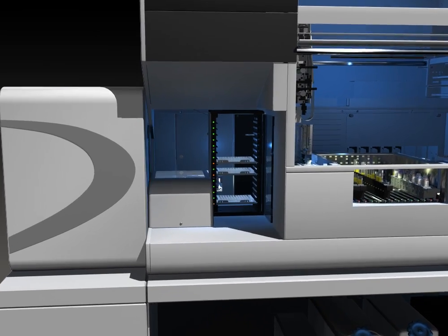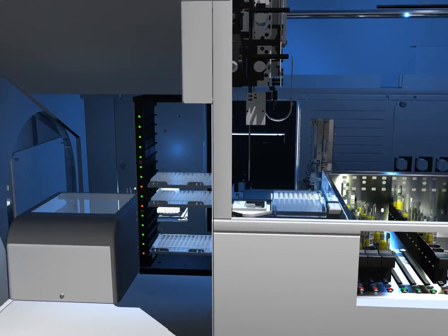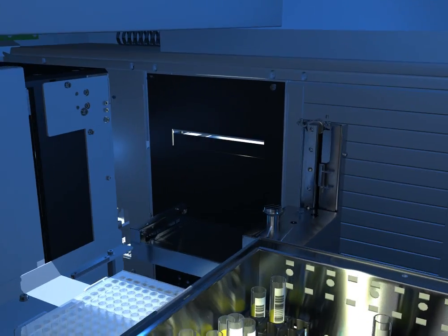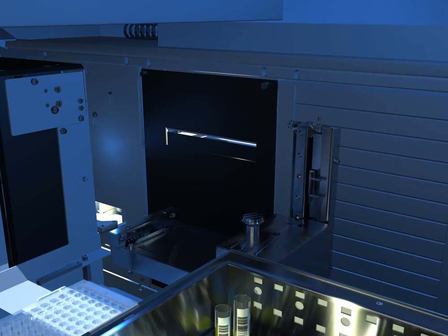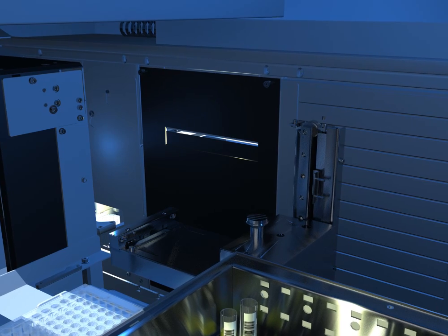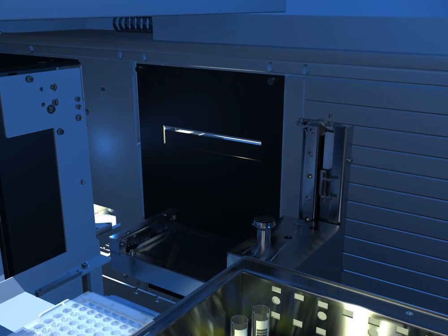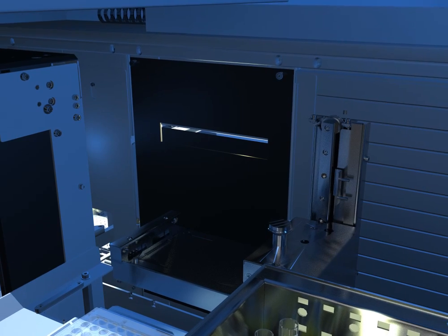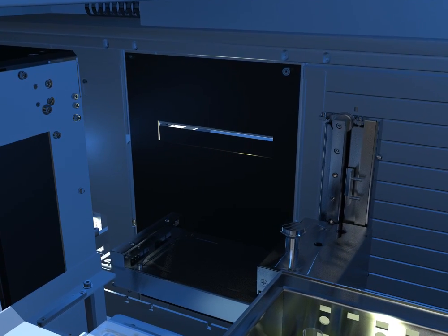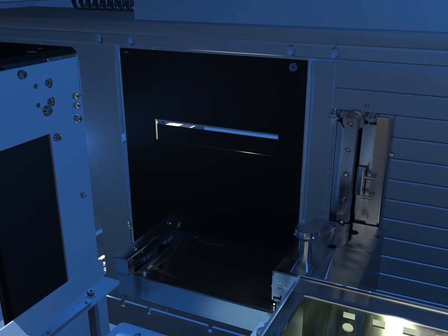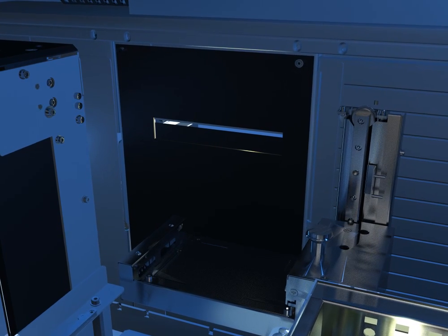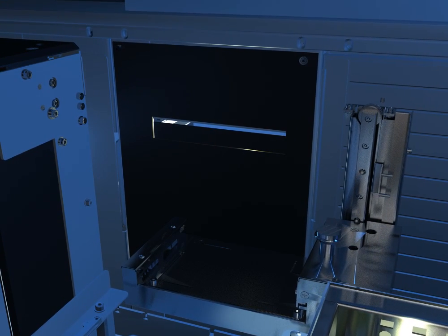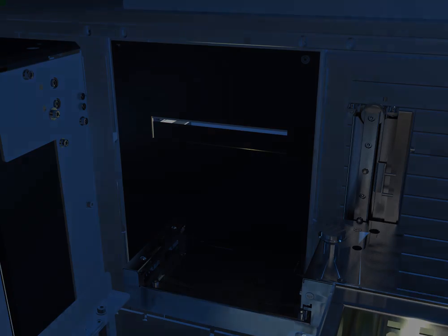Behind the microplate loading tower is NEO's reader. The reader is utilized to check plates prior to testing for process control steps such as color verification checks and for reading results. We use two CCD cameras on the NEO. They take digital photographs of the microplate to use for interpretation. By interpreting the pixels of the well reactions, NEO makes an interpretation. We call this an image analysis reader.